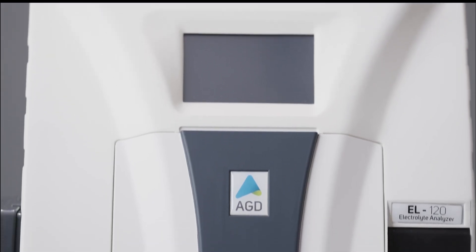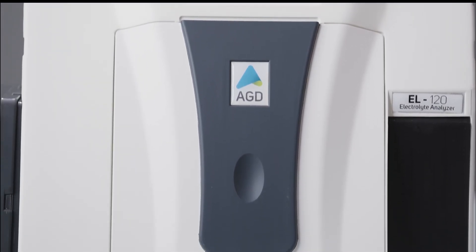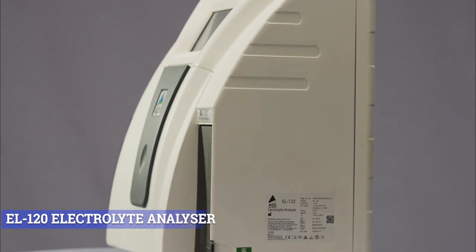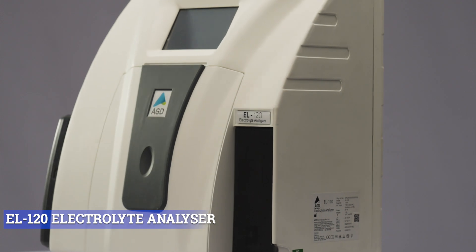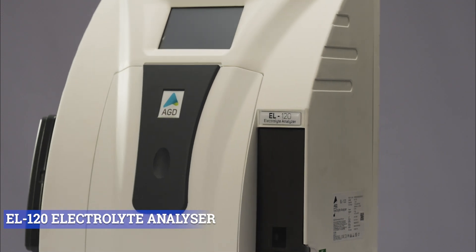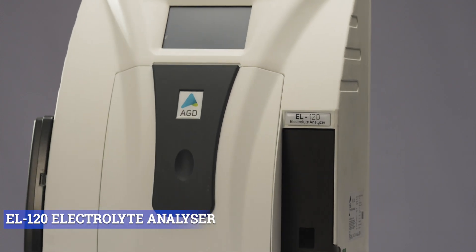Now presents our state-of-the-art electrolyte analyzer, equipped with a range of features to provide accurate and precise measurement of electrolytes.